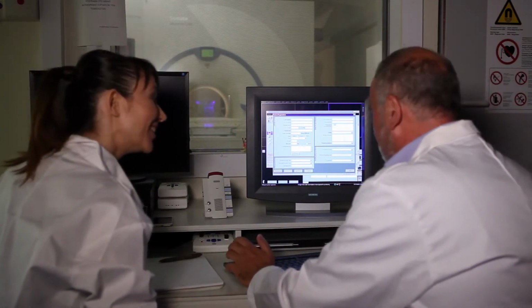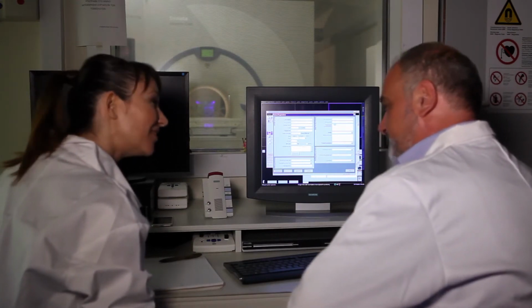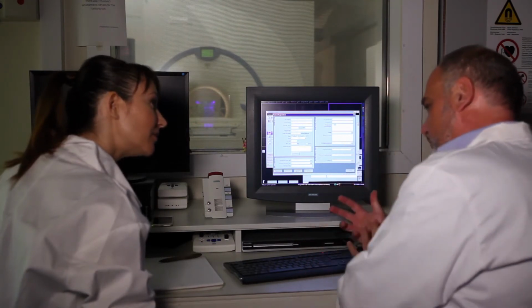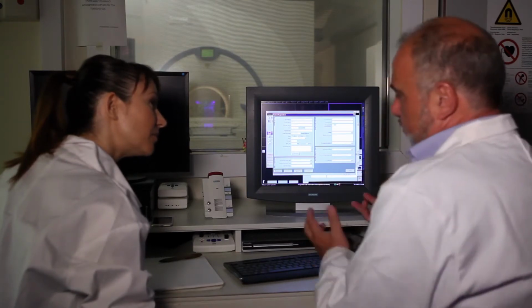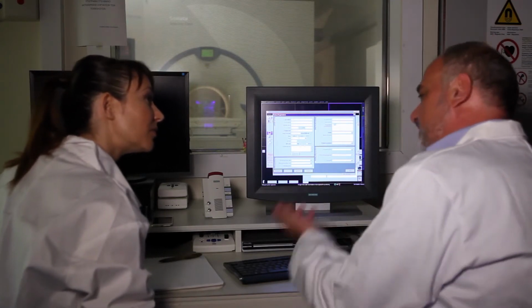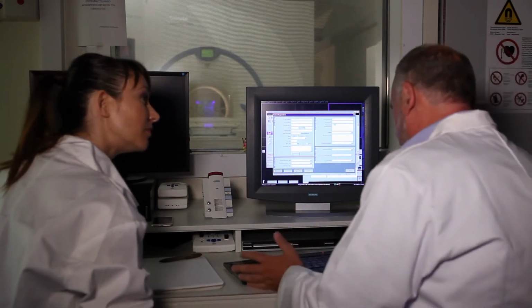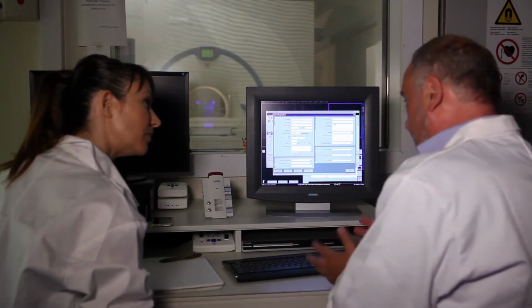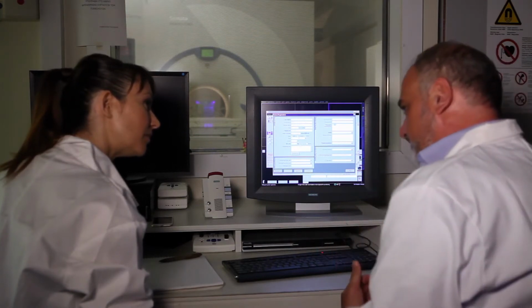But why do we do this? We do this because we actually want to ohmically load the coil. Okay. And that's the idea. I mean, the magnet has to assume that there is a patient inside the bore. So 100 kilos is the weight we put in order to load the coil. So it has to do with the transmitting. It has to do definitely with the transmission of the RF for the coil. There is a whole lecture actually, there's a lot of things there. The point is that the coil or the material, the filling material of the coil, has to be appropriately selected in order to absorb the RF. Okay.